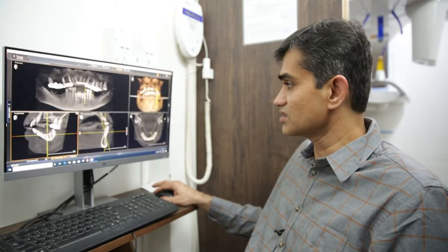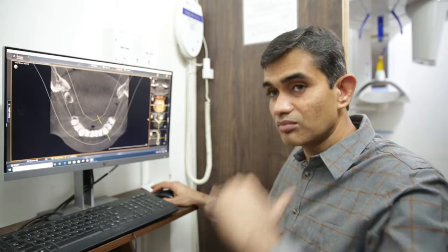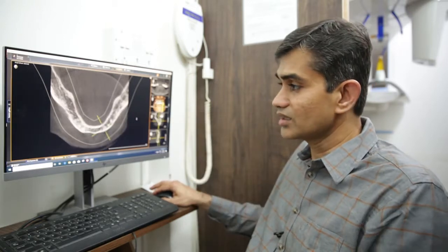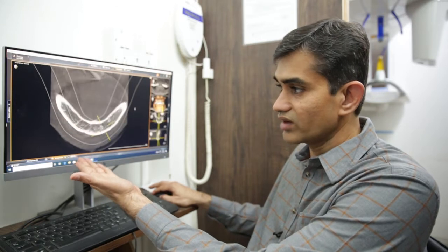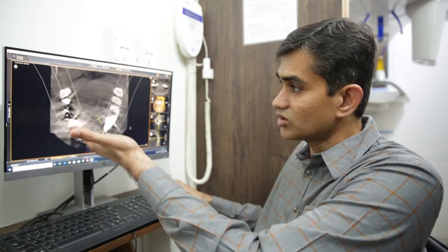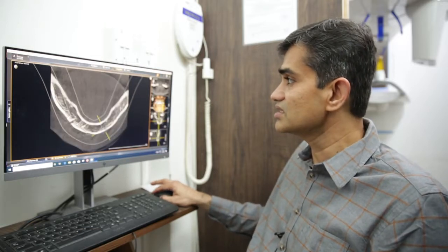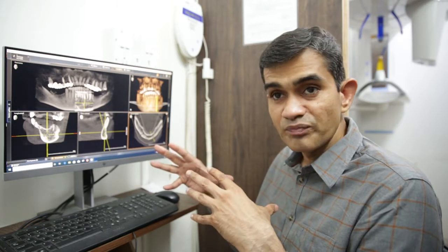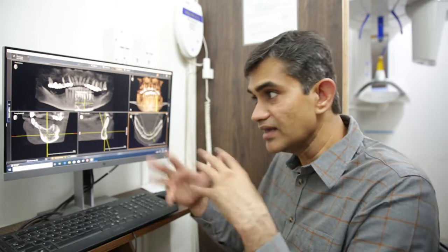It also gives us something called the axial view. The axial view is a top to bottom or bottom to top view. As you go up you can see down to the jaw, and as you come up you can see images on top of the screen. So this is what a CBCT is — the first step.